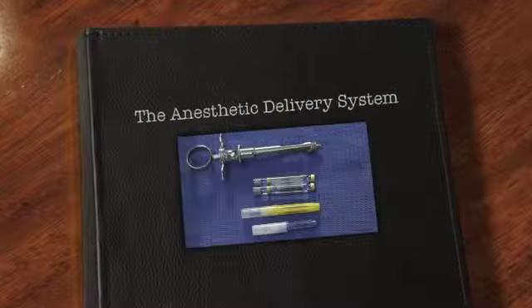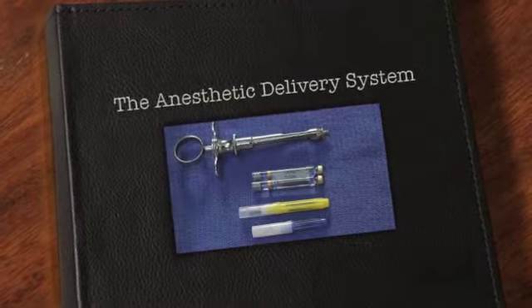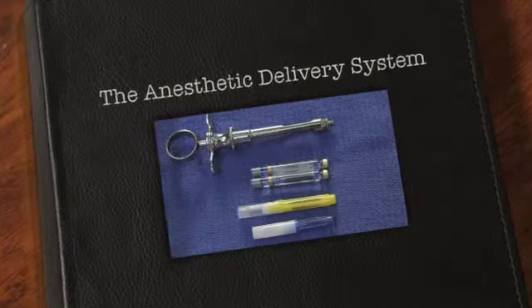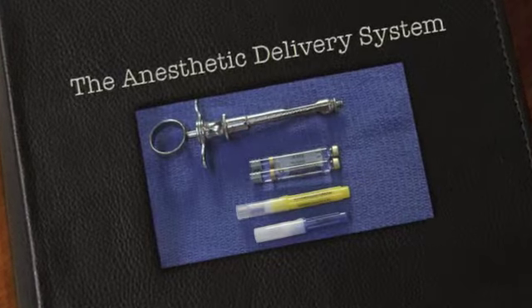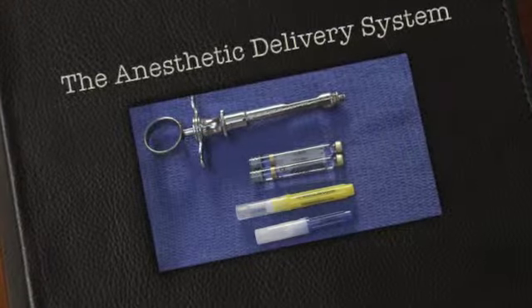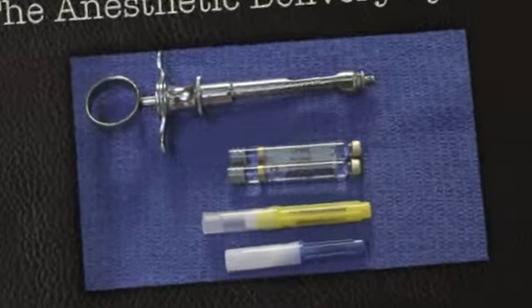Welcome back to our continuing series for the dental assistant serving as a volunteer with the University of Florida College of Dentistry. In this video, we're going to be talking about local anesthetic, the system, and how to handle the equipment related to the delivery of local anesthesia in dentistry.